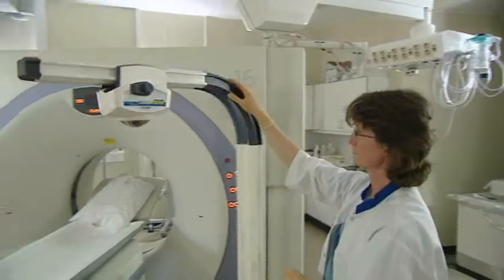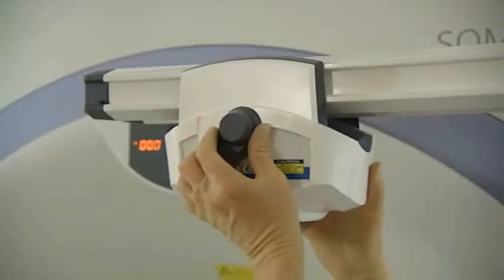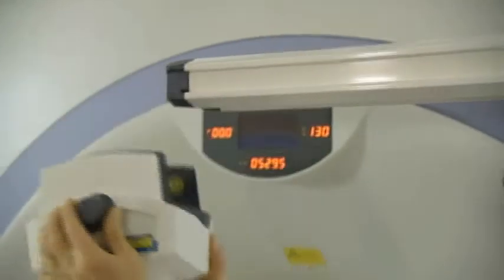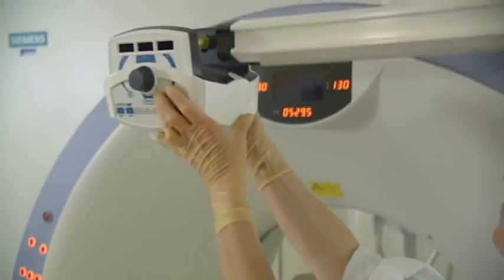When, during positioning, the SimpliCT's display is found to be facing the gantry, it is easy to slide the unit off the rail, turn it around and re-enter it so that the display faces the users.